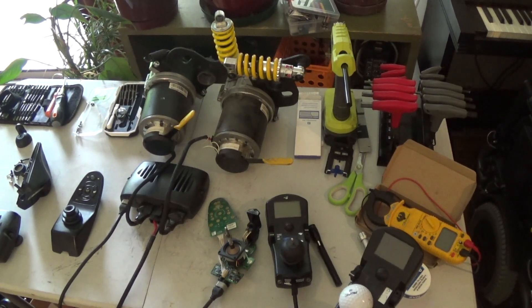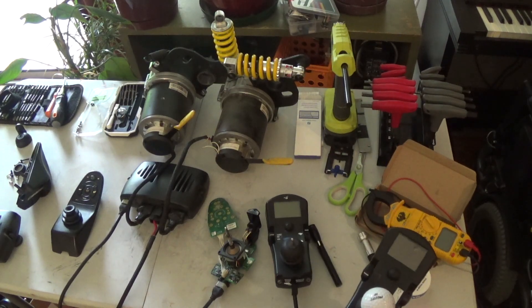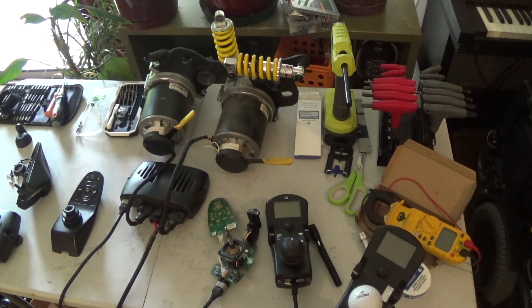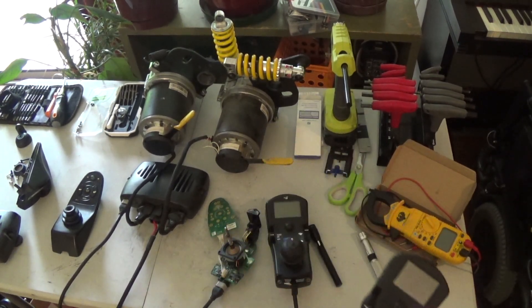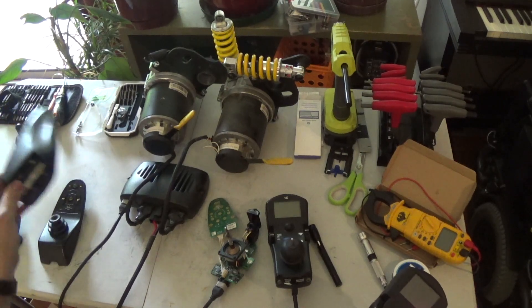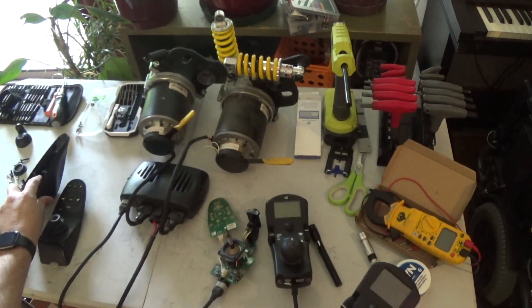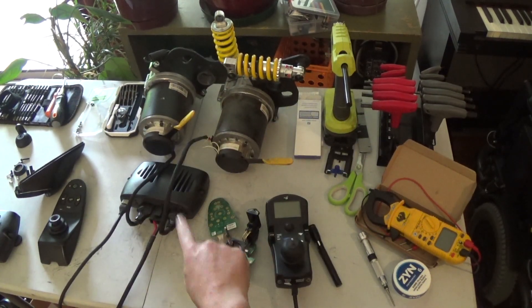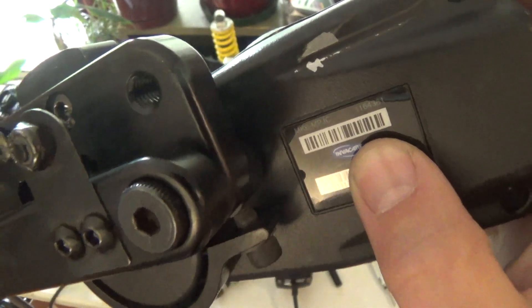This video is specific for people doing development with remote control, CAN bus interface, and serial interface for hooking up Arduinos and Raspberry Pis to wheelchair controllers. The main question is: can you replace an MK6i color joystick with the MK5 Shark-style joystick, which is the MK5 SPJ Plus, used with an MK6 controller that originally had an MK6 MPJC?